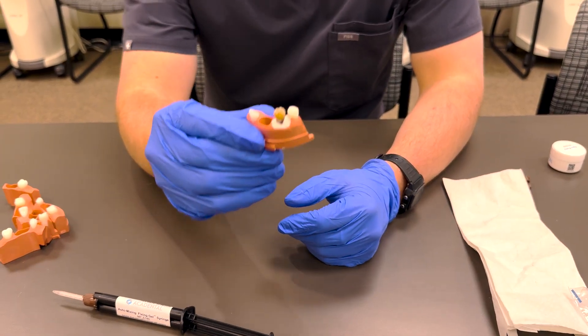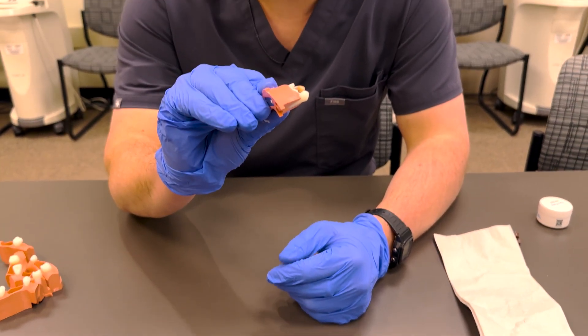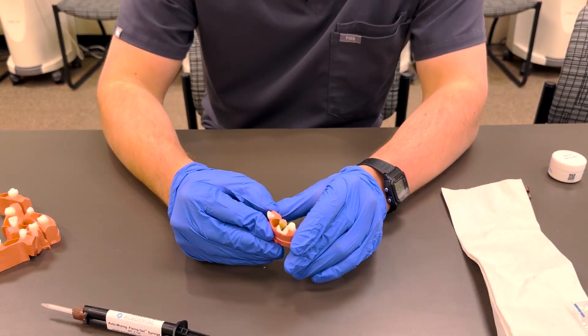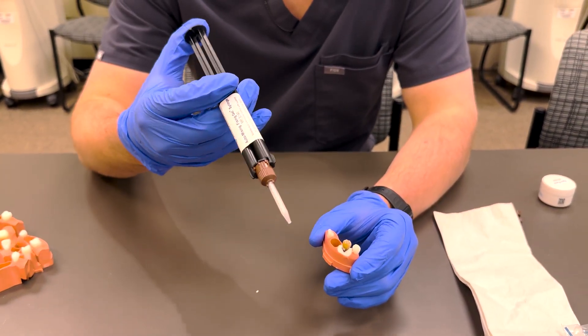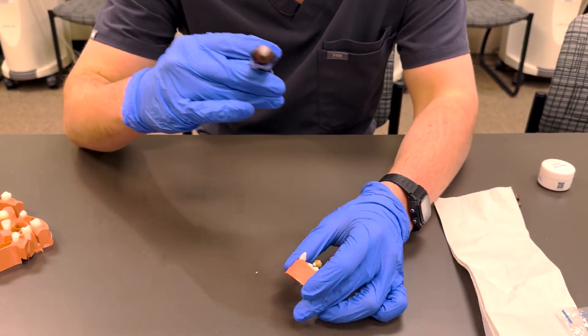Now that you have it all smoothed out and up to that surface, you need to put the fixing gel over it. What you're going to do is assemble this with these tips and be very careful because this is difficult to come by.